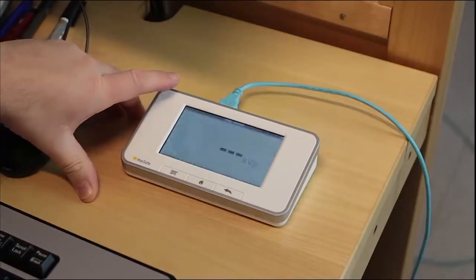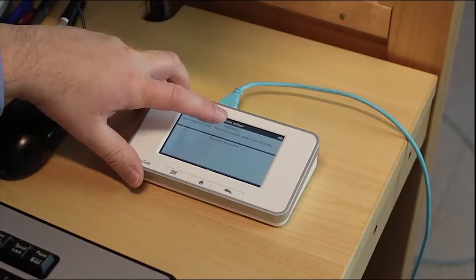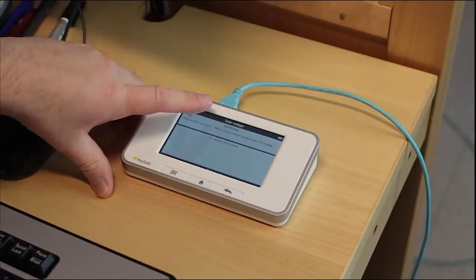Press the button and it says please choose a beam quality to get the KV reading. So we do that.